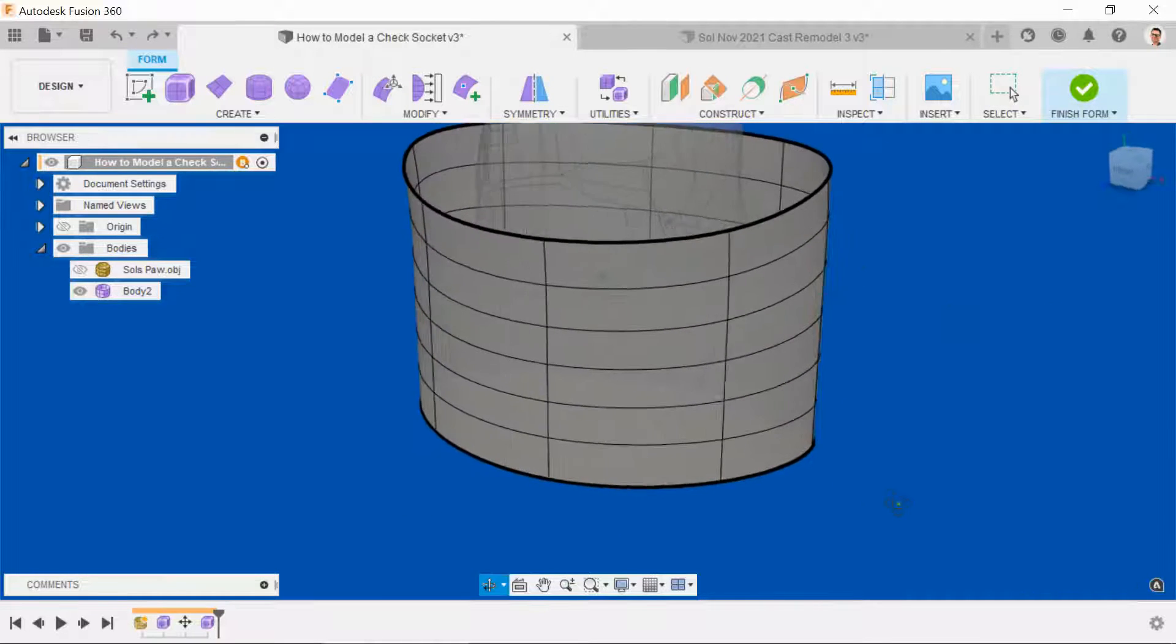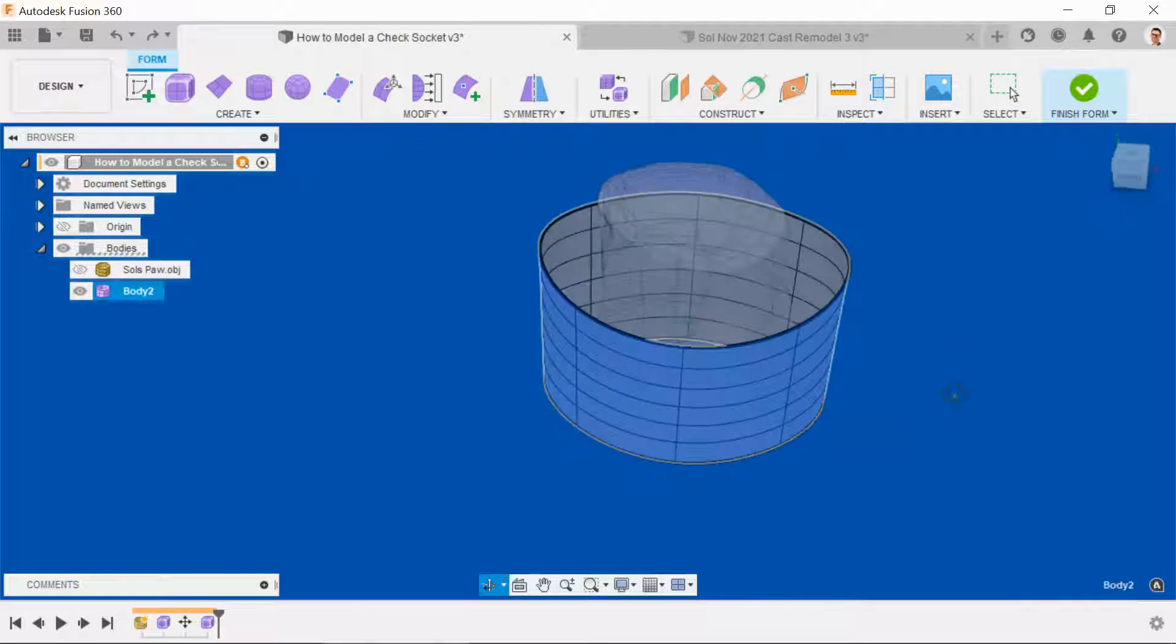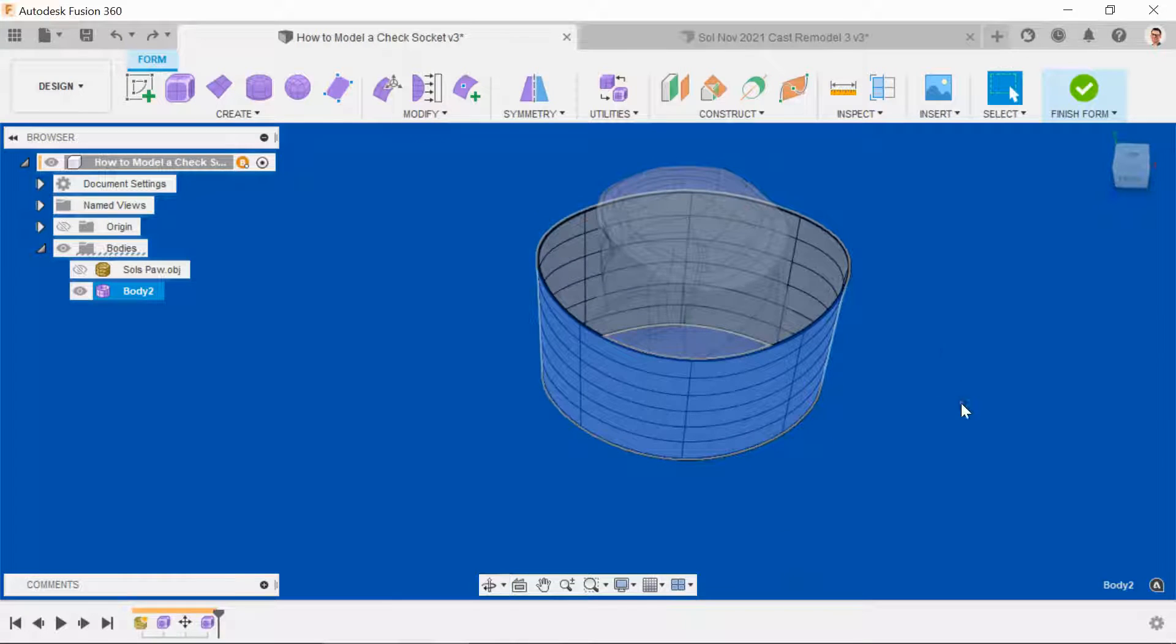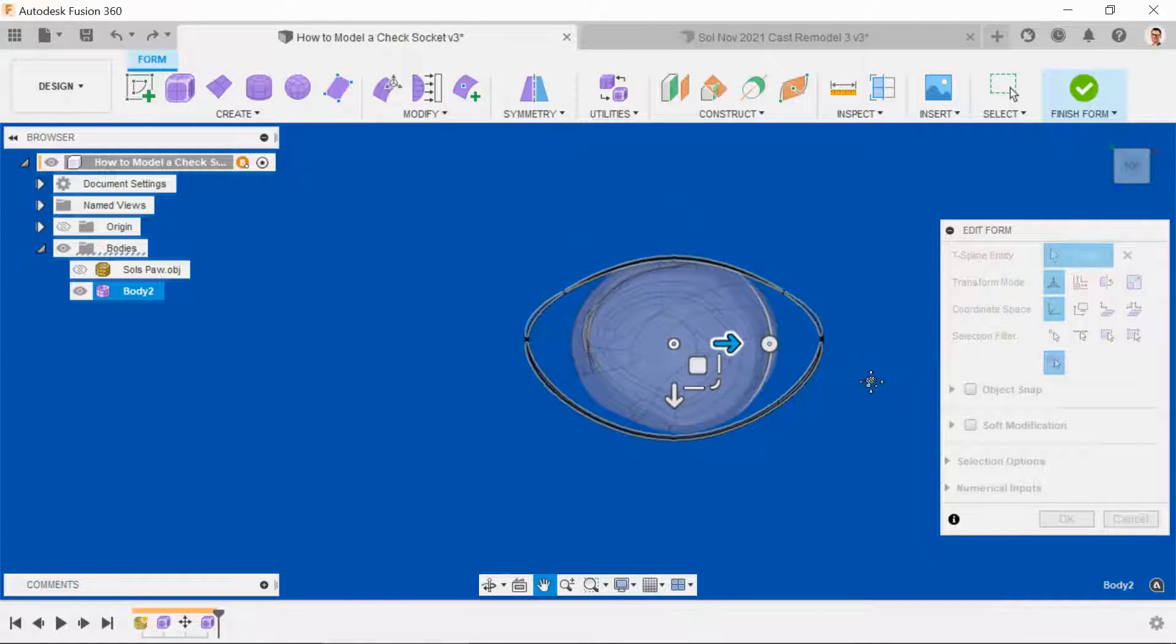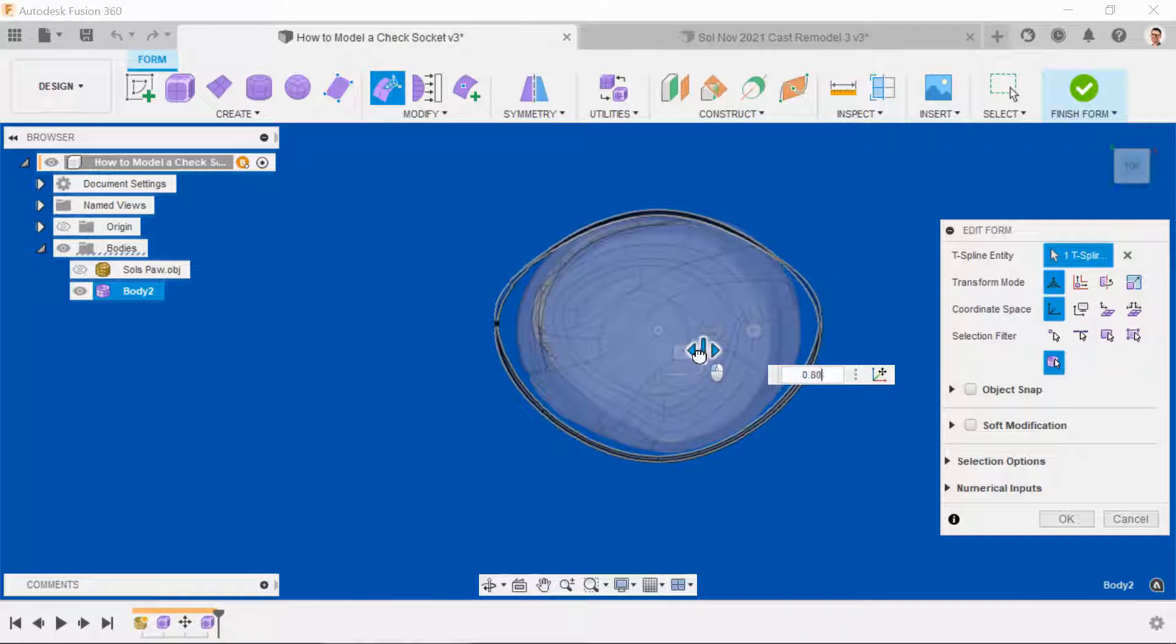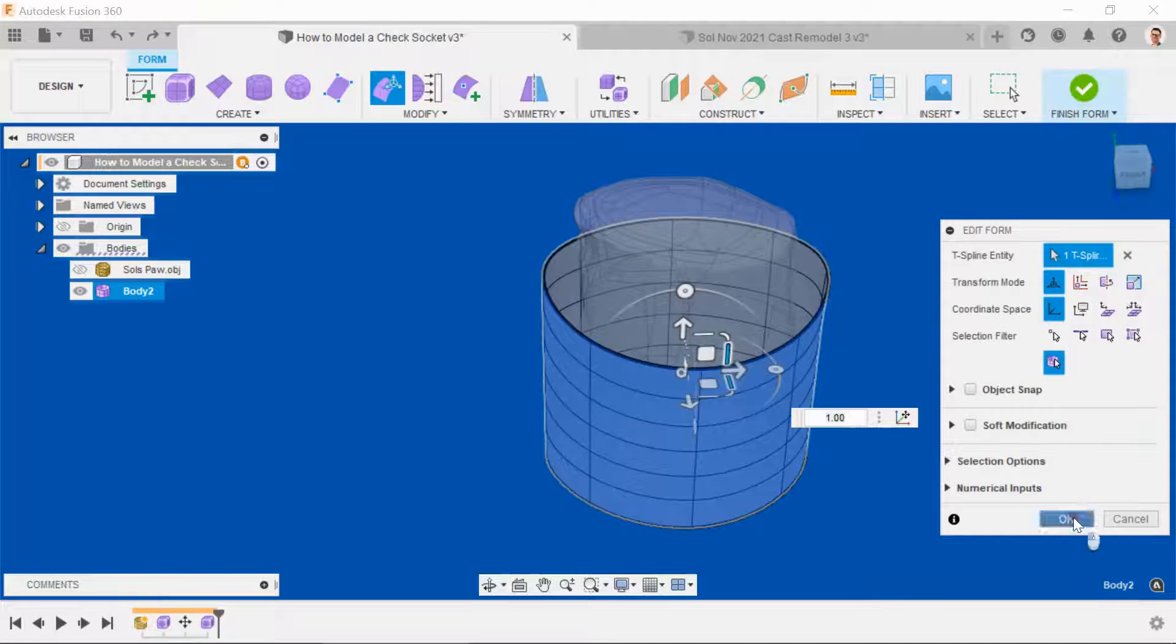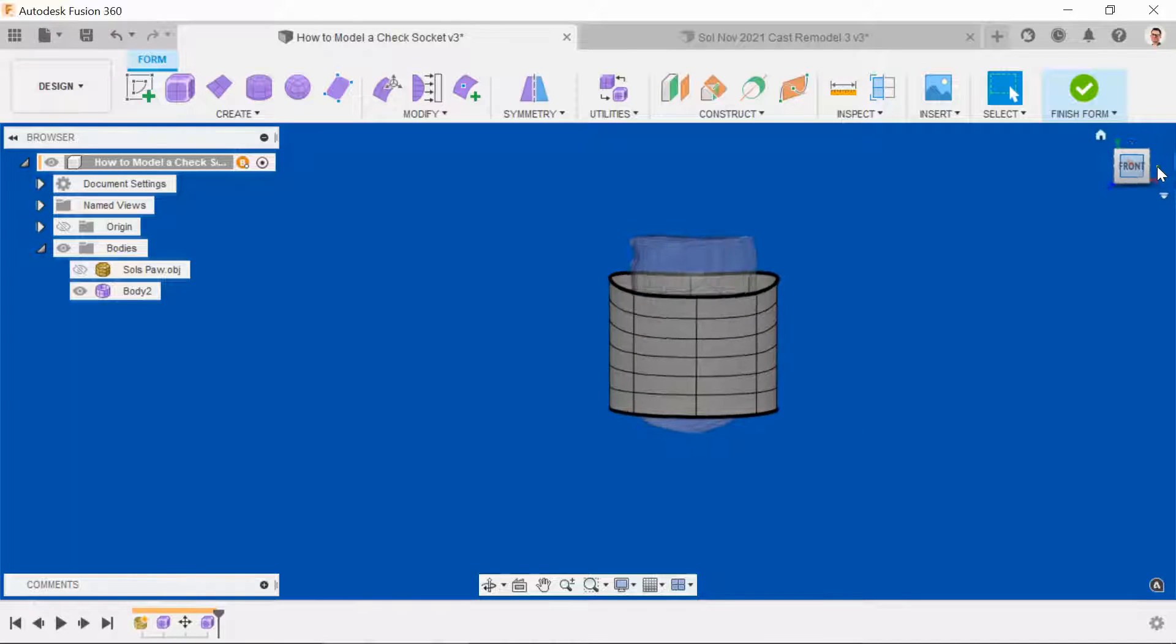From here things look okay, but if you turn to the side and look face on, we can see that everything is elongated out to the sides. So we just highlight the entire body, again right-click, edit form, and I'm just going to select the top of the NaviCube. What I want to do is use these scale bars to just pull the sides in. Like that. Then return back to the side view.